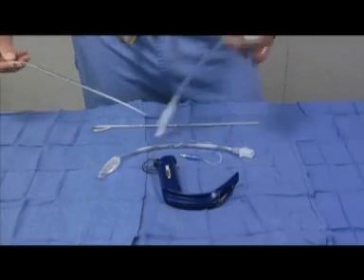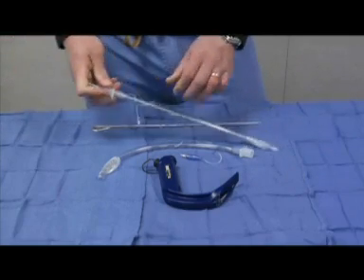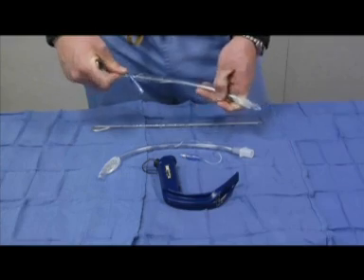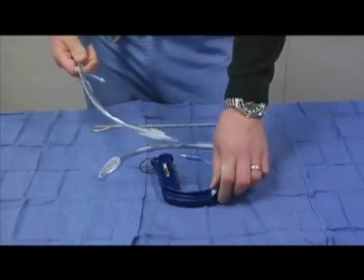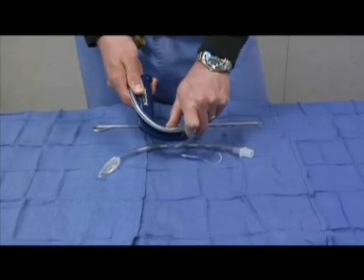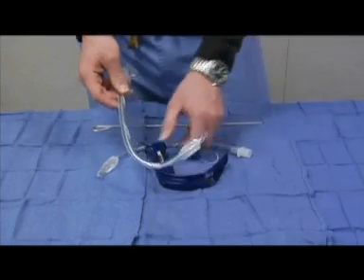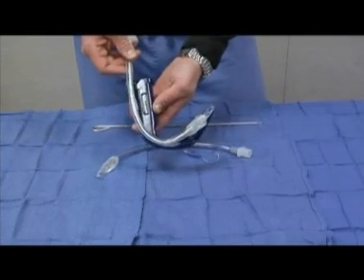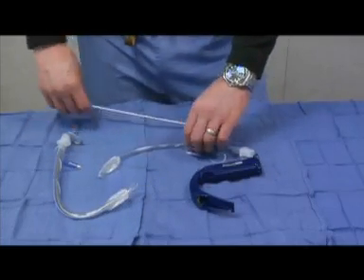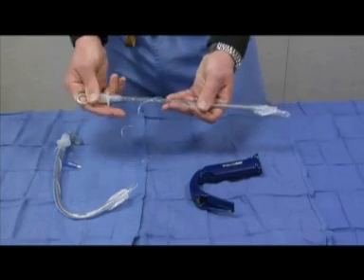The stylet is inserted into the endotracheal tube and manipulated to either a 60 or 90 degree angulation. The Glidescope blade itself will serve as a guide for the more commonly used 60 degree approach. Both angulations have been compared in clinical trials and have been found to be equally effective in achieving successful endotracheal tube placement.